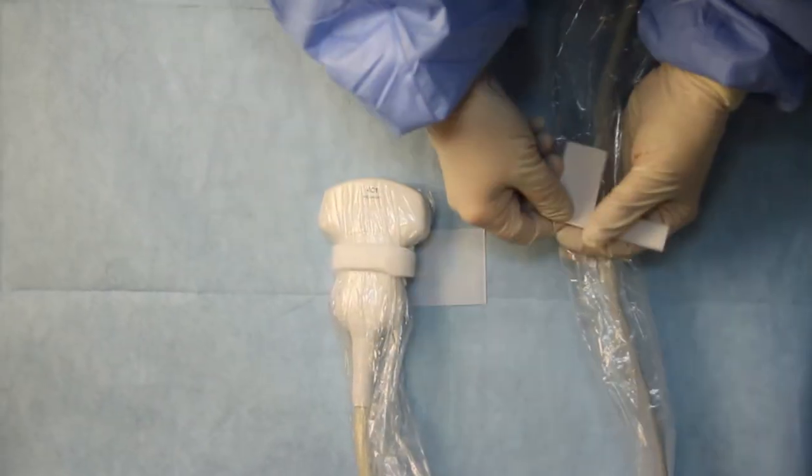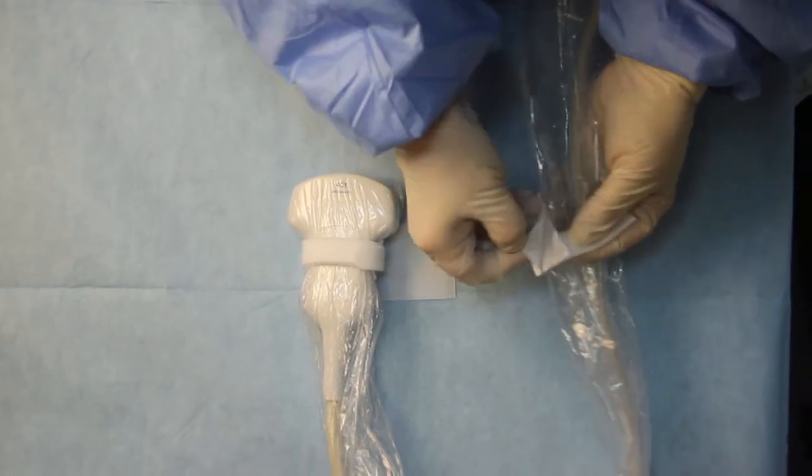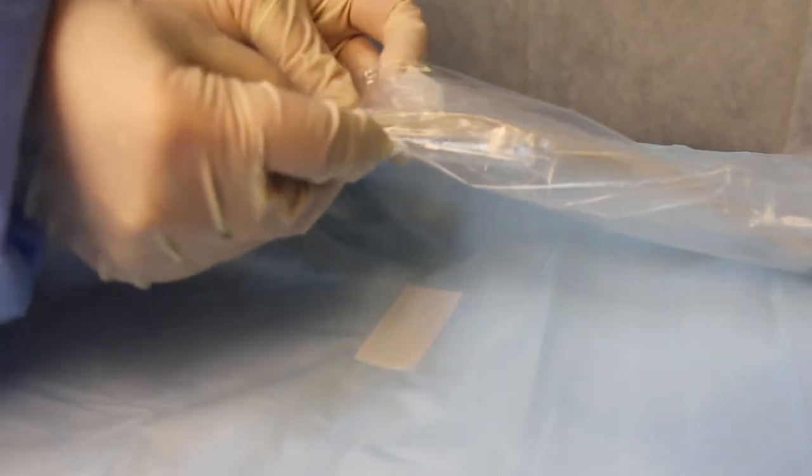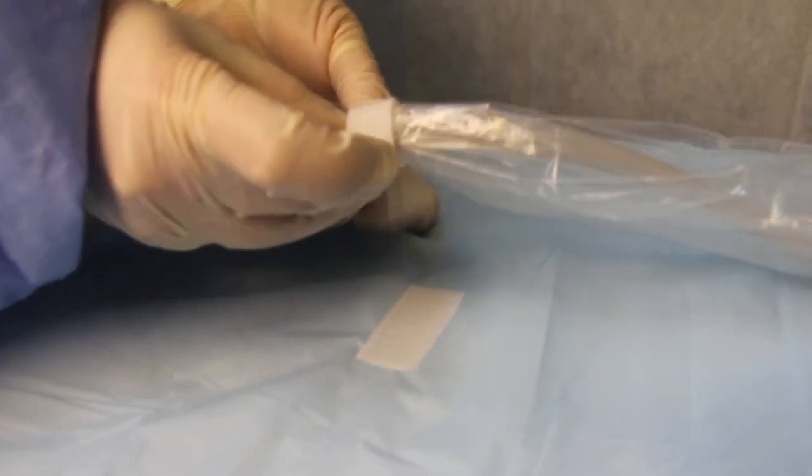Take the two small pieces, peel and stick the pad where the loop lies most conveniently. Then take the small tie and wrap it around the tail to secure it to the small pad.